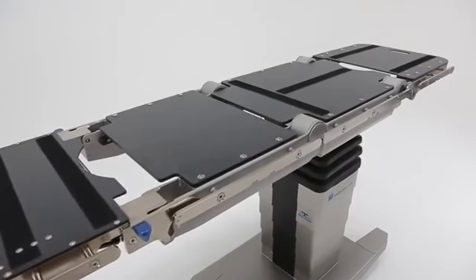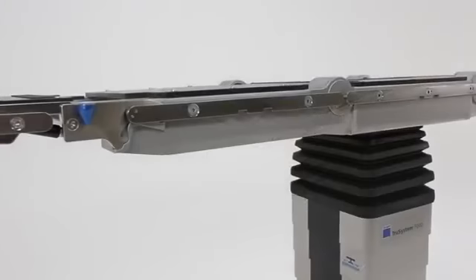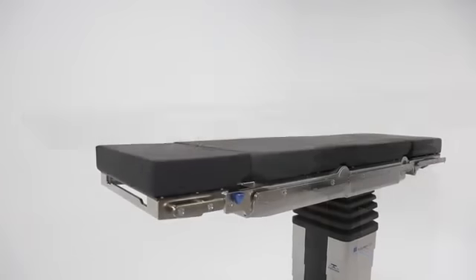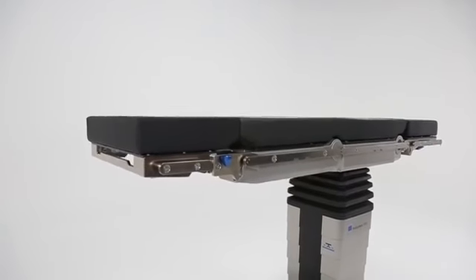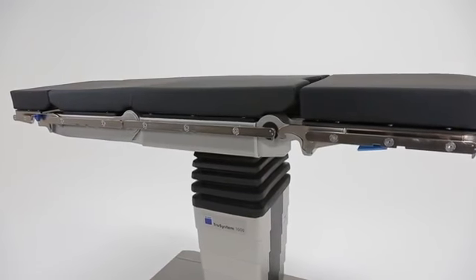So that is why by adding the TruSystem 7000 to our award-winning portfolio, Trumpf Medical has delivered on our promise to provide you the highest quality and innovation in the market. By collaborating with you, we were able to achieve our shared goal of providing the very best in patient care. Trumpf, bringing you the right tool.